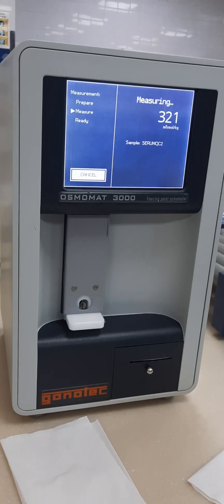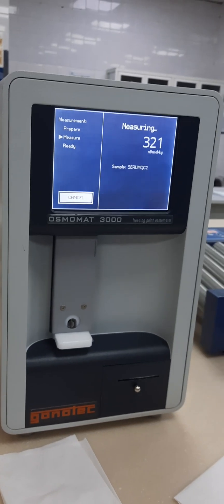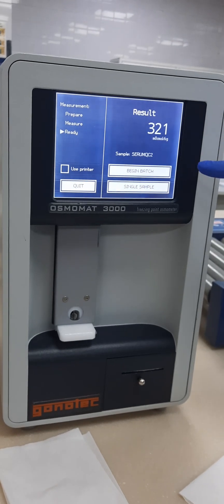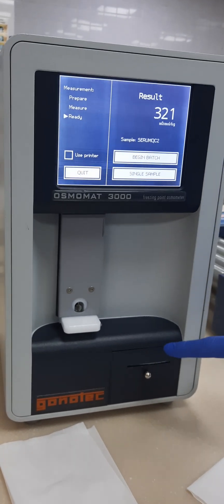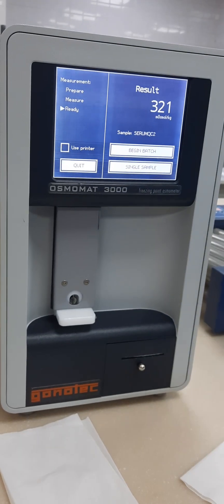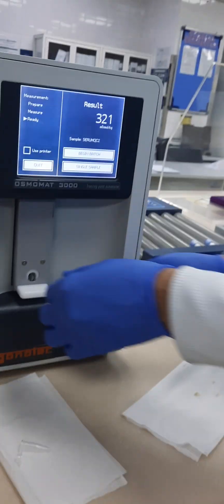How many samples do you have? Only three hospitals and one machine. So 321 — the results. Because we don't have the printer, we ordered it already. If you keep like that, they will give you the printer. That's why we are writing here only. I will write to the first note: 321. Manual entry.